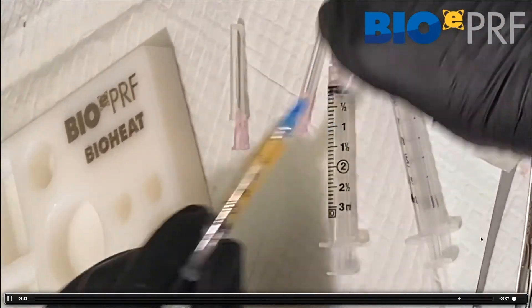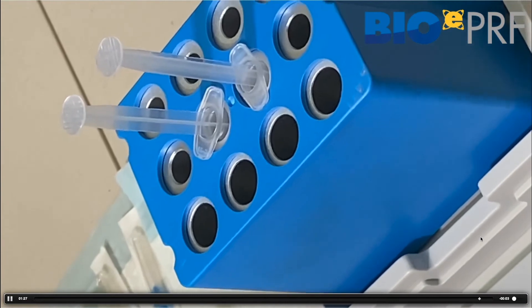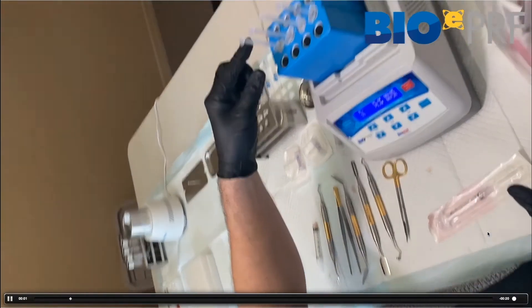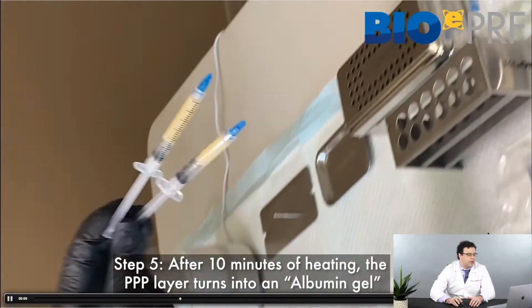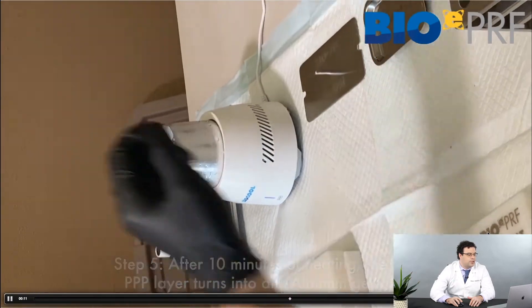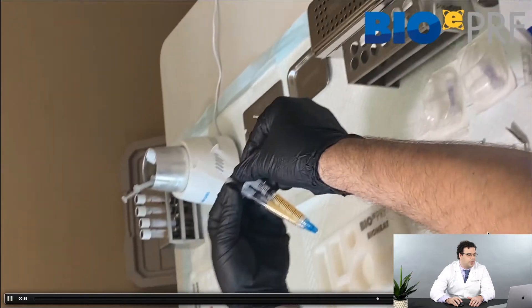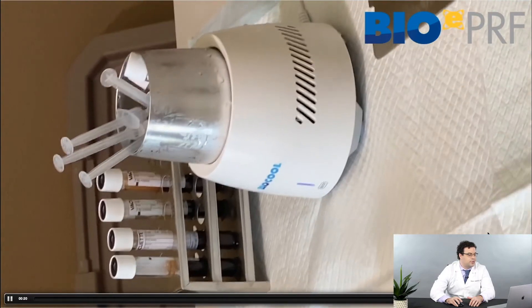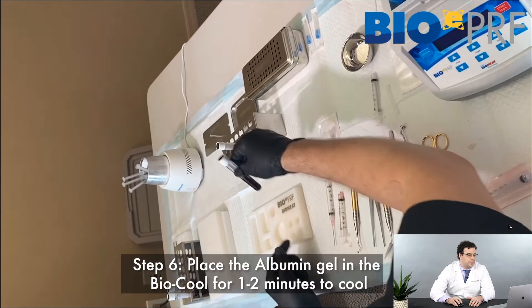We pull the blue end out, place it in the bio heat, and away it goes. When done, you can see the texture is quite different from liquid platelet-rich fibrin. Anytime we have bio heat product, we always have to cool it first — because it's at 75 degrees Celsius, if you mix it directly with liquid platelet-rich fibrin it will actually destroy the cells.